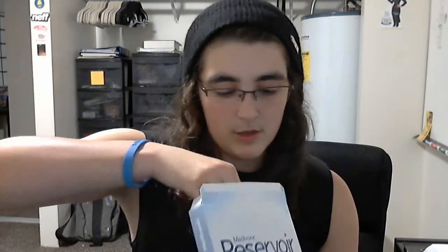I also have just a normal 3.0 milliliter reservoir. And then of course I have the insertion device — my favorite. I actually forgot it on a trip one time and had to manually insert my pump site, and it was very painful and did not work very well, so I'm not very good at putting in needles quickly. And then I also have this IV3000 tape that helps keep my site on longer.